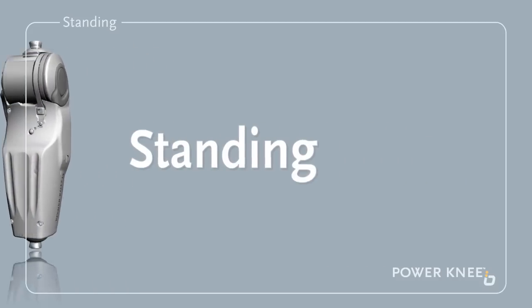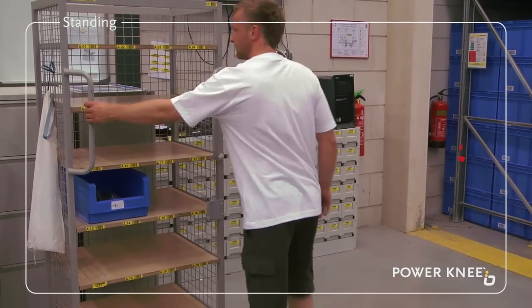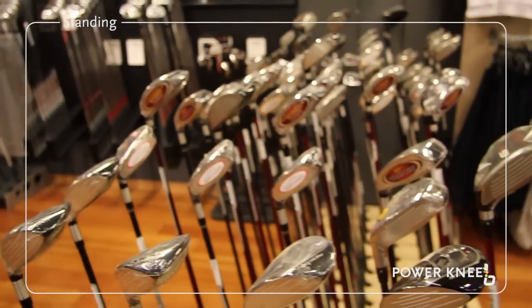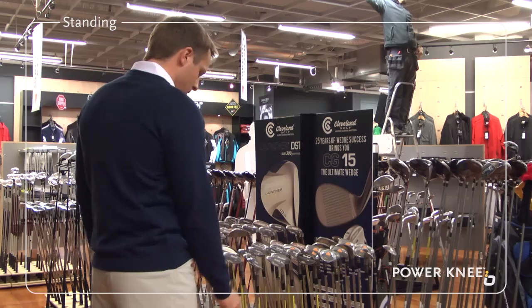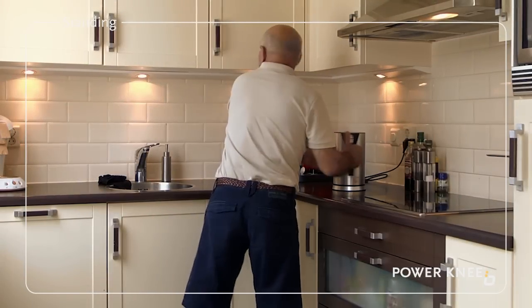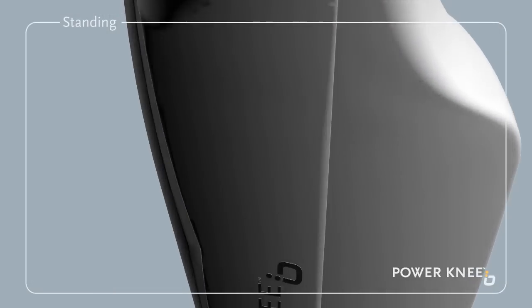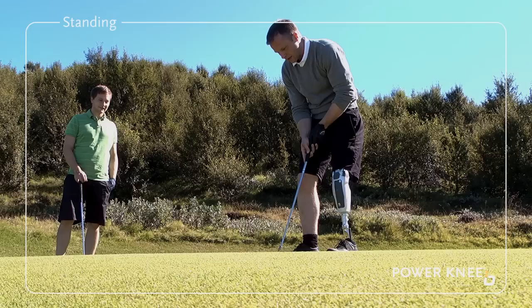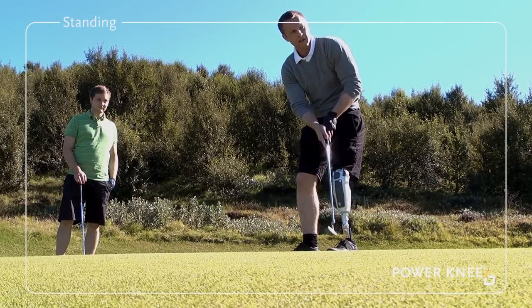Standing. Whether it is at work, rest or play, your Power Knee copes easily, allowing you to move around quickly and efficiently. The knee allows you to move in confined spaces while performing common day-to-day tasks like preparing food in the kitchen, getting around the shops, or popping in and out of the office. Its sophisticated artificial intelligence means the knee is capable of thinking for itself, so you don't have to give it a second thought. The Power Knee locks and provides full support whenever you are standing, and unlocks and moves freely during walking.